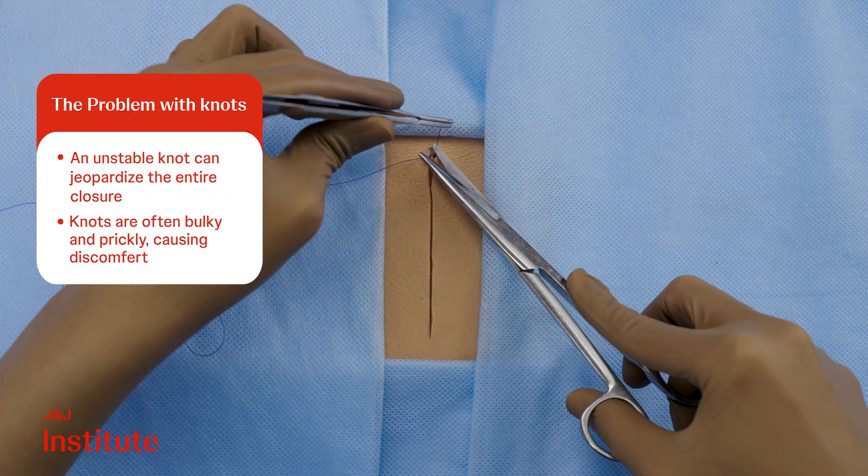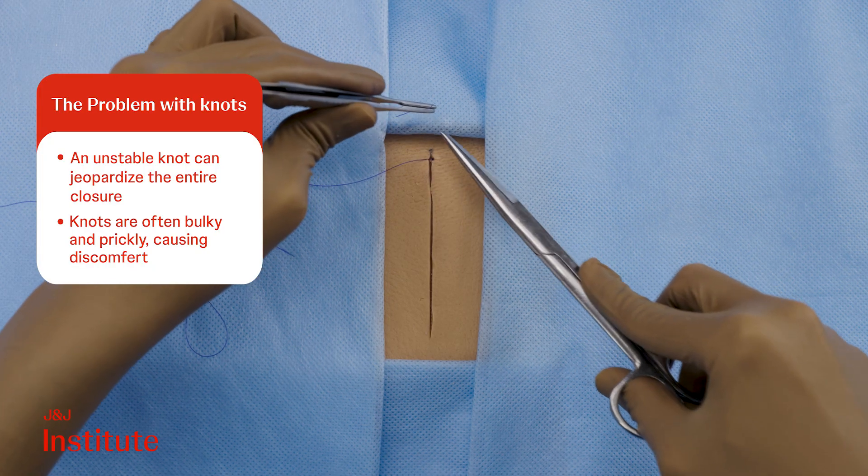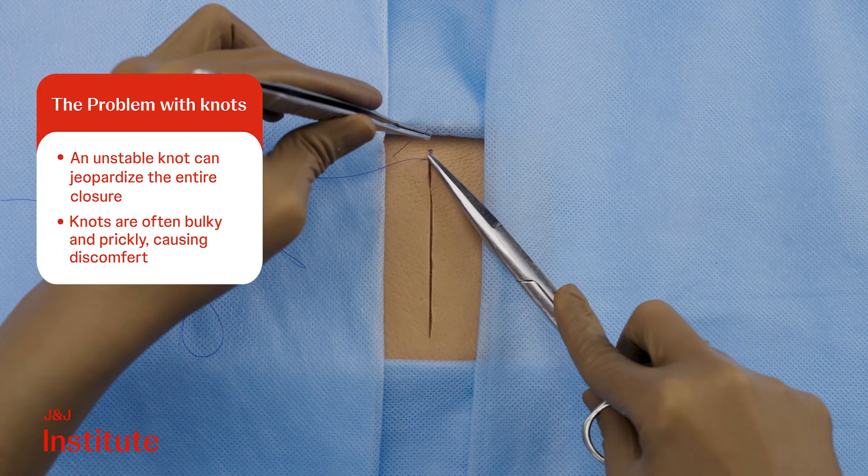Additionally, palpable knots from monofilament sutures can cause discomfort to the patient, and subcuticular closure can also be time-intensive. Barbed sutures offer solutions to address these concerns.